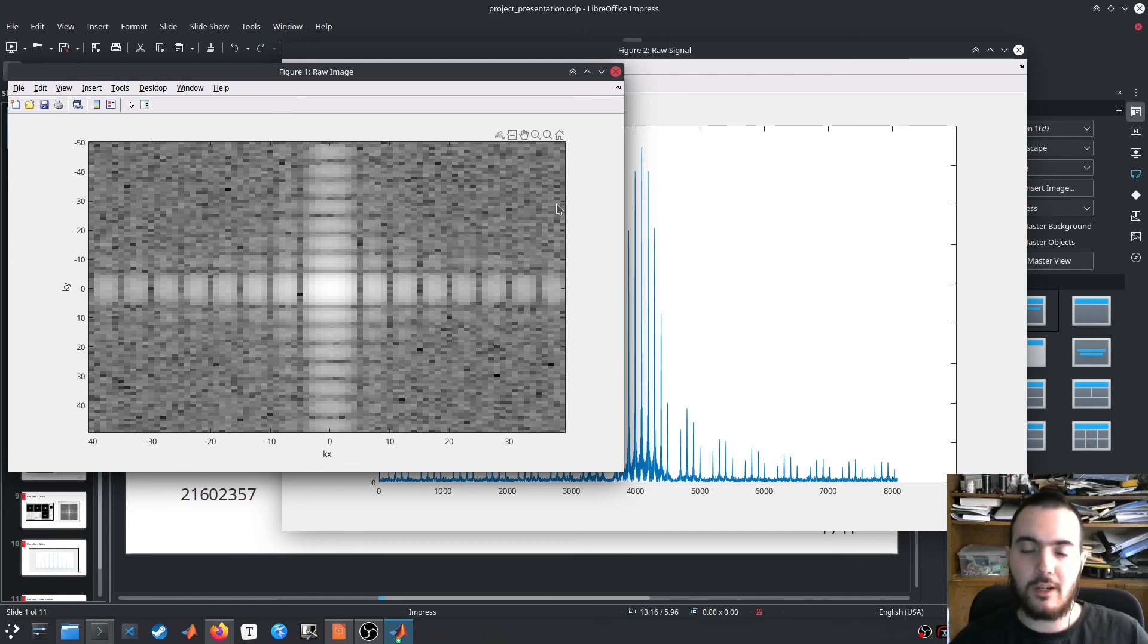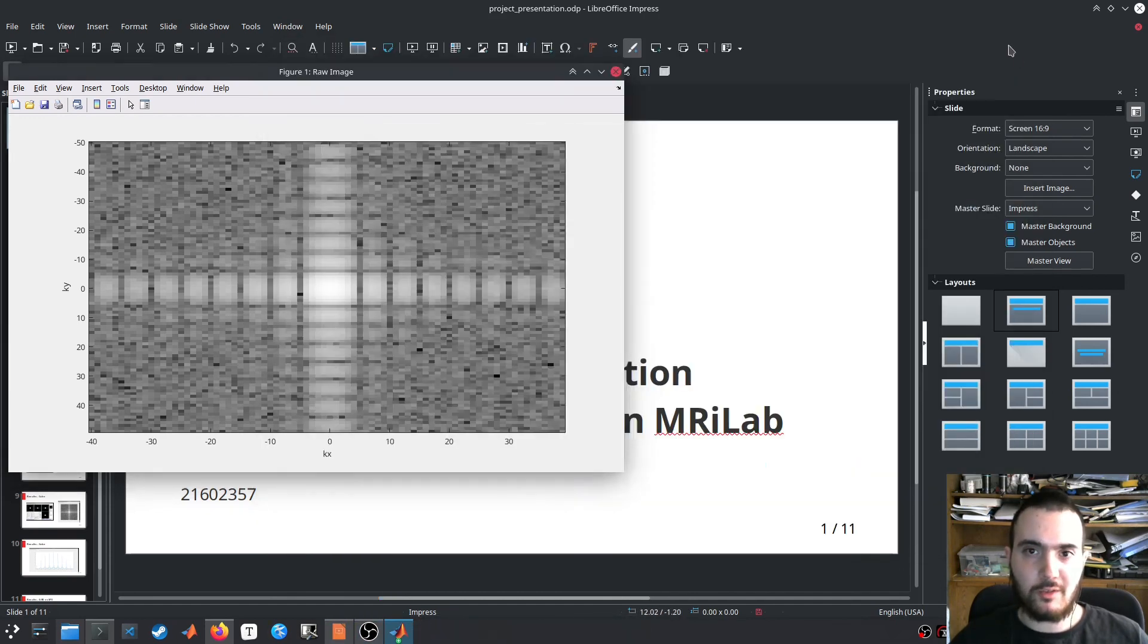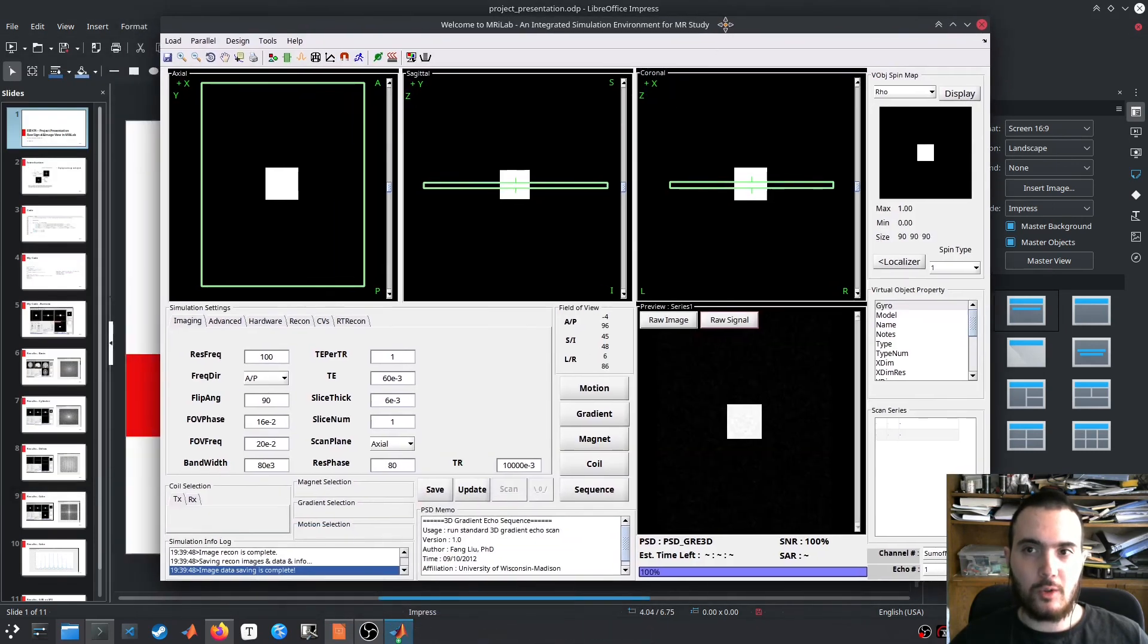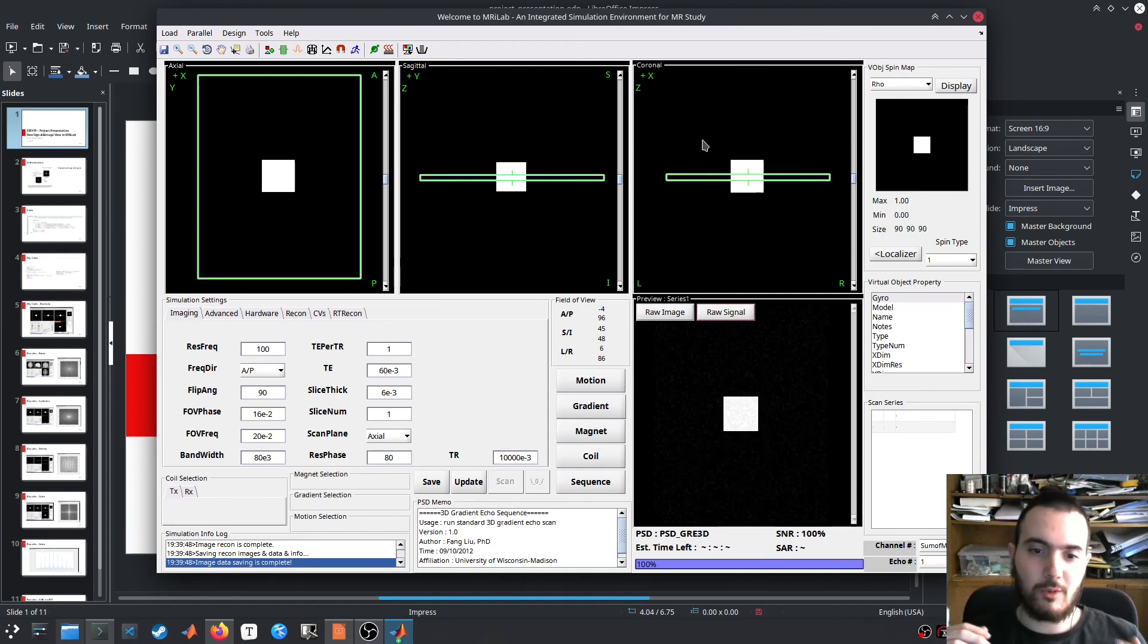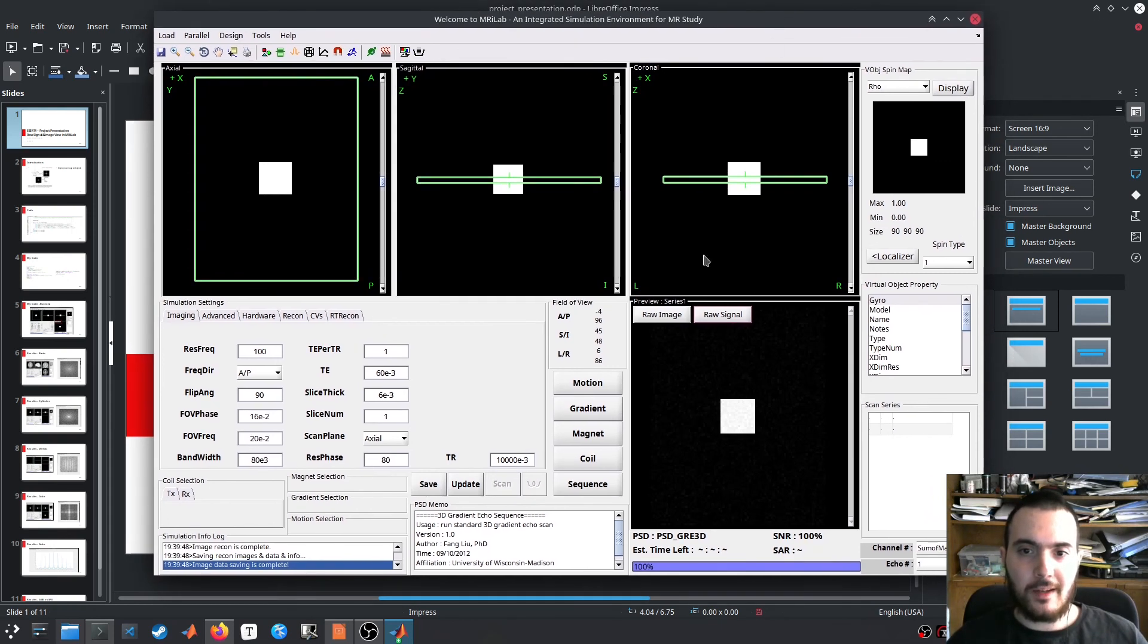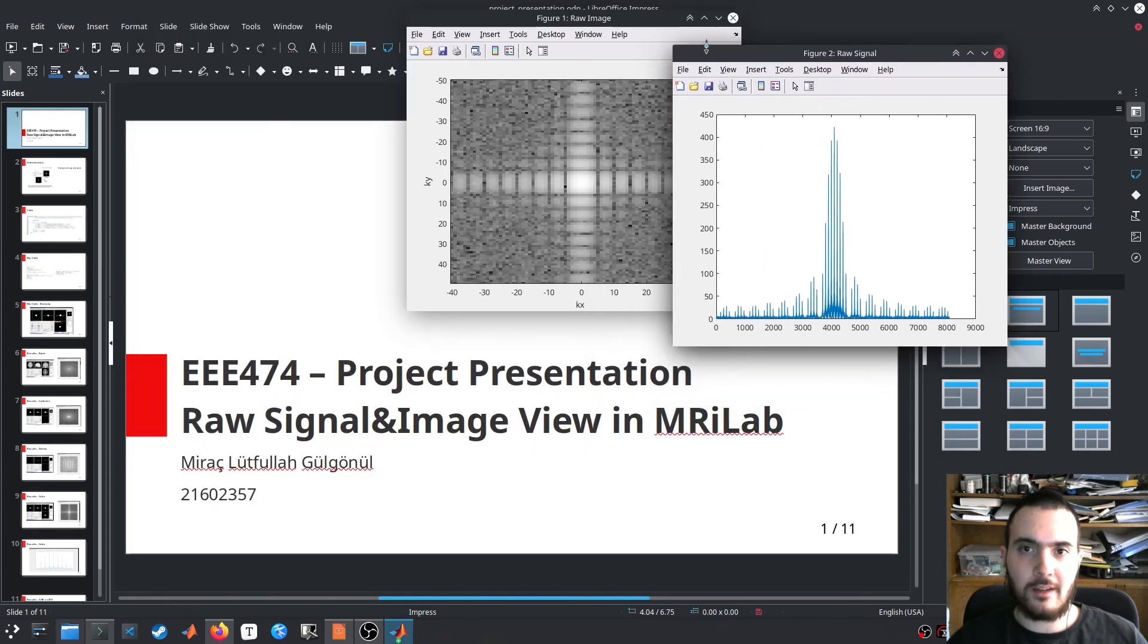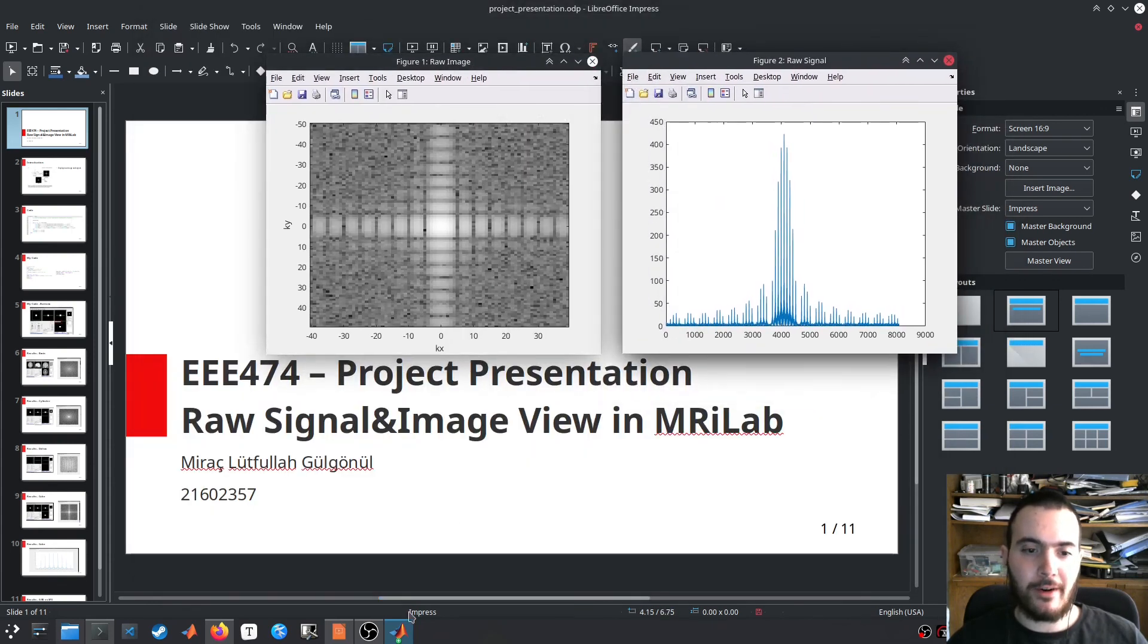I suspect this is because the MATLAB code uses external C++ code to handle these heavy computations, and you have to make some additional functions to transfer data between these C++ functions and the MATLAB functions. But apart from that, as you can see, we can observe the raw image and the raw signal, which is the functionality added to MR lab.